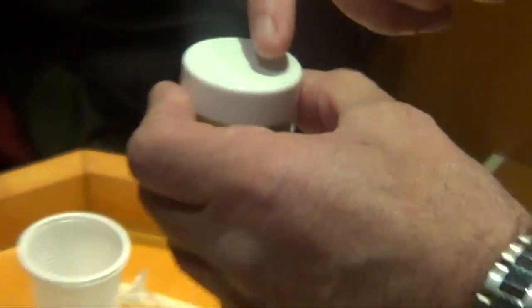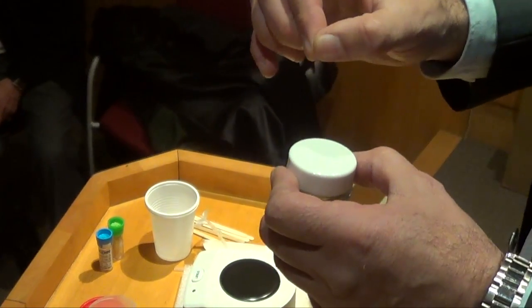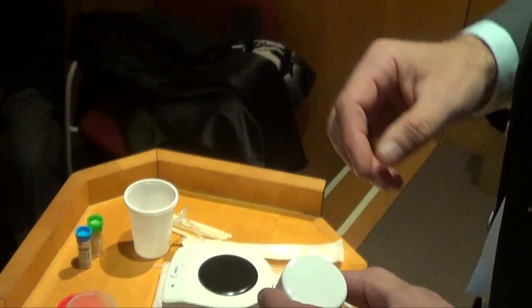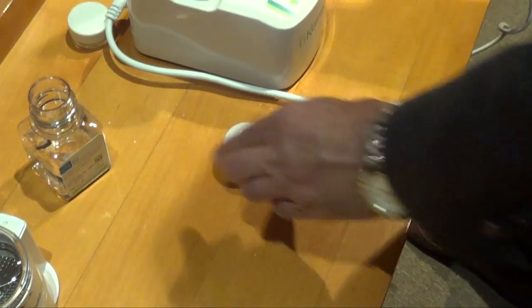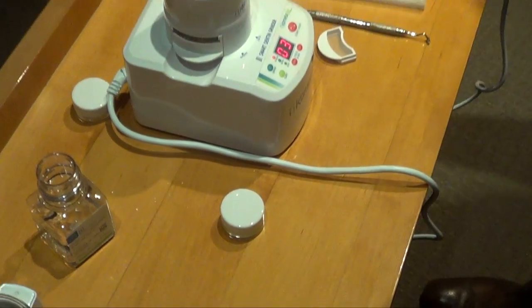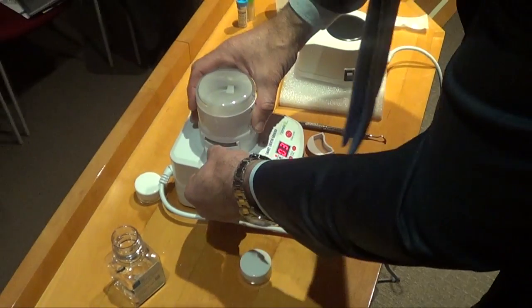You cannot see, but in the kit on the vial you will see the possibility to put the name of the patient and the date, using and giving to the patient, not to keep in our cell, for medical legal aspects of use.